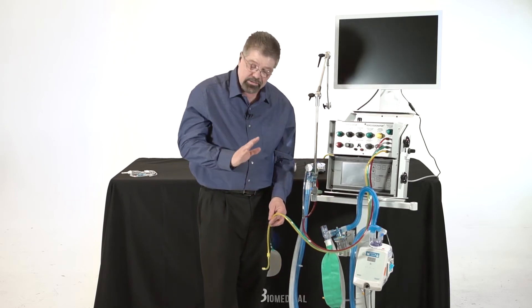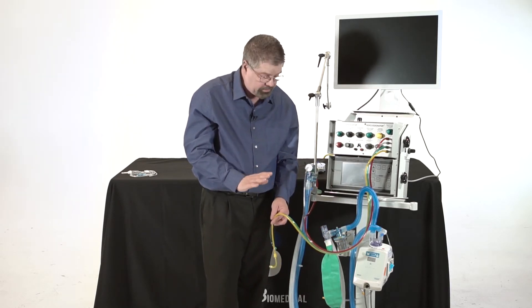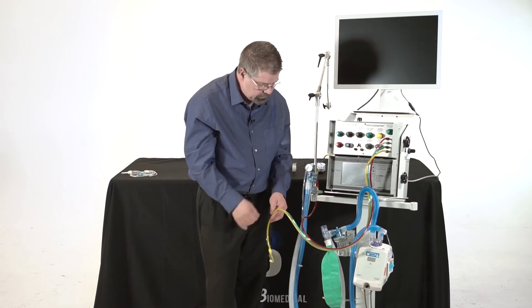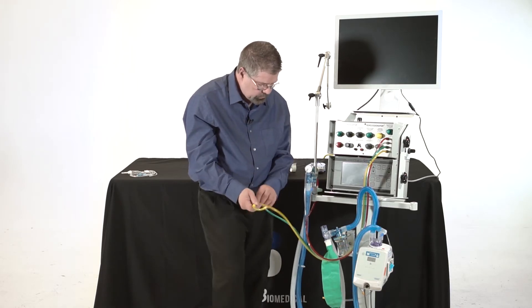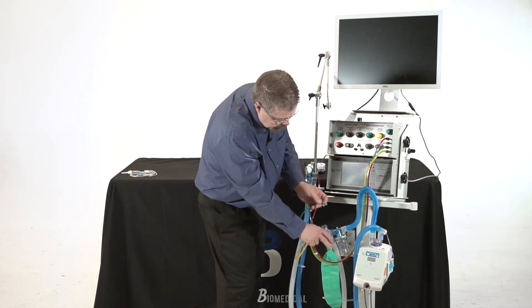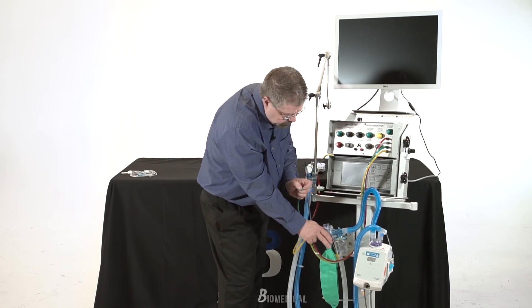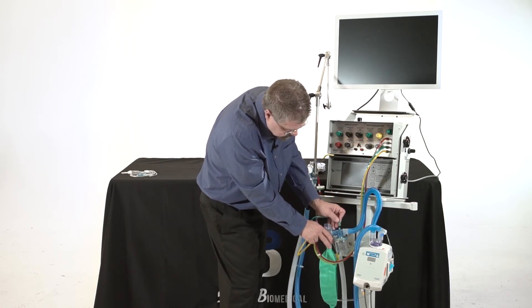Today we're talking about the ventilator circuit that the manufacturer provides and recommends that we start to use with the VDR. So again, let's say it's been a while since you've watched this video, and you try to accidentally put it to this connection. You could never accidentally put it to the wrong connection.